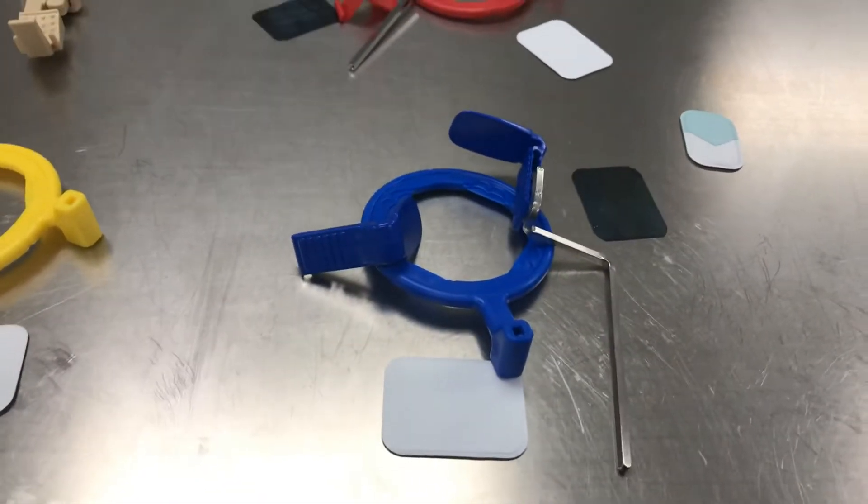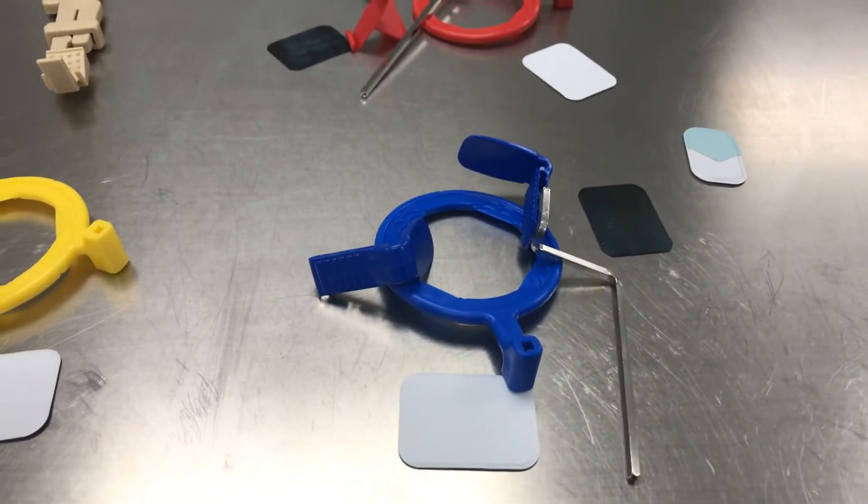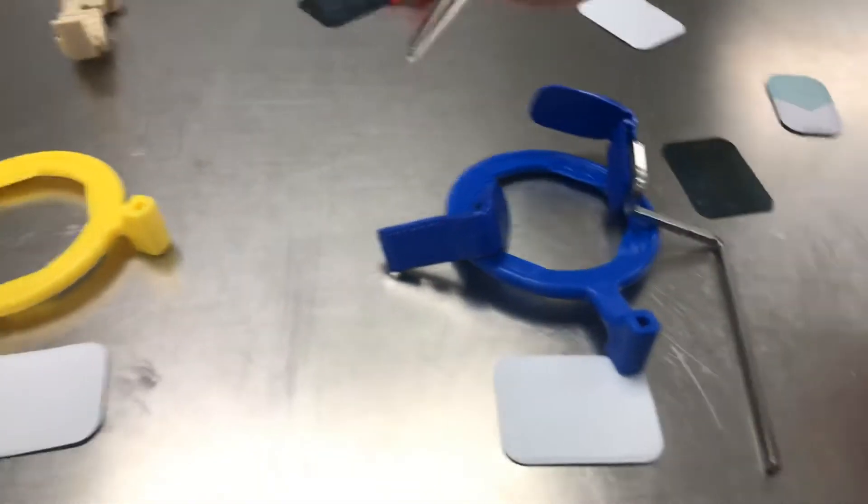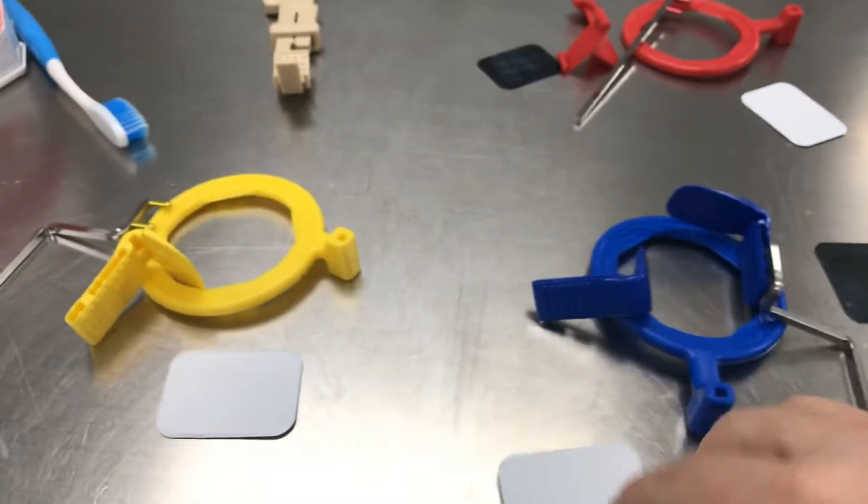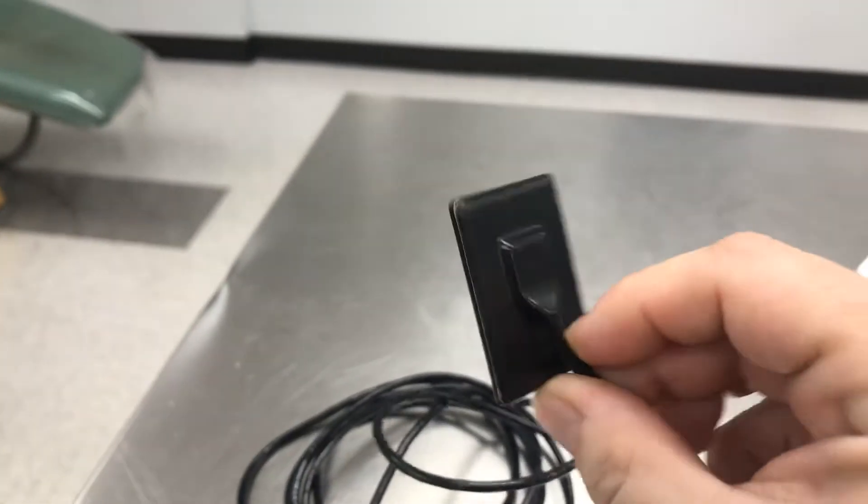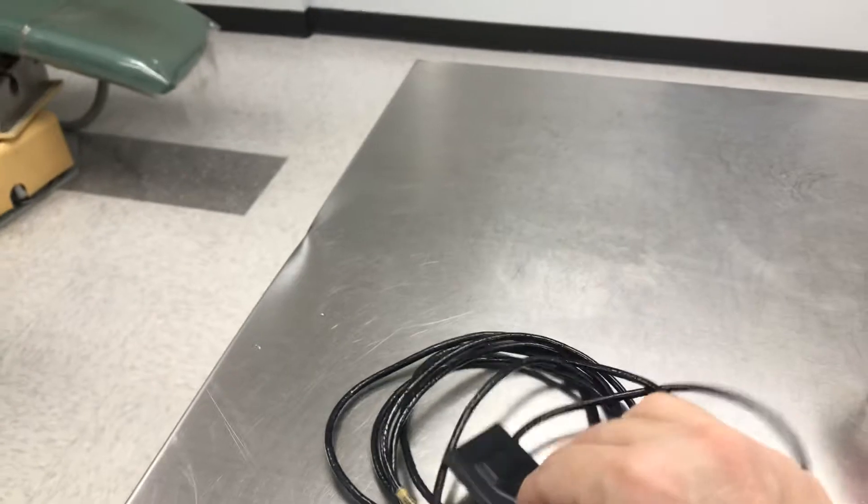So this is for taking x-rays. You can use it for the old-fashioned kind radiographs, and you can also use them for digital. You need a different little holder for it, but it's basically the same.